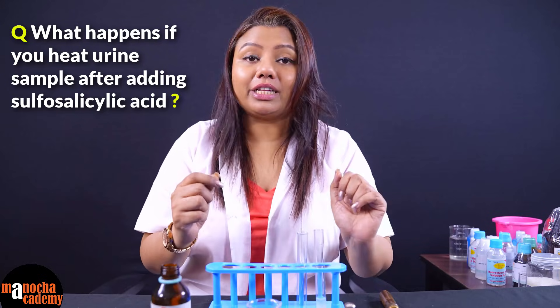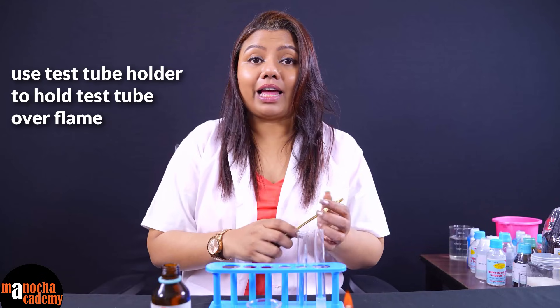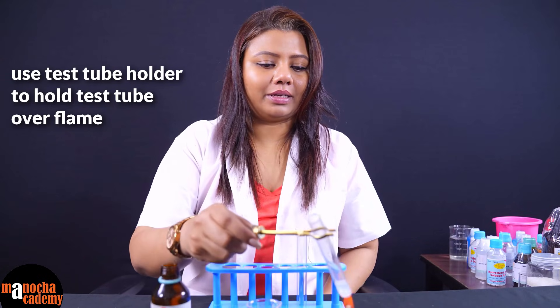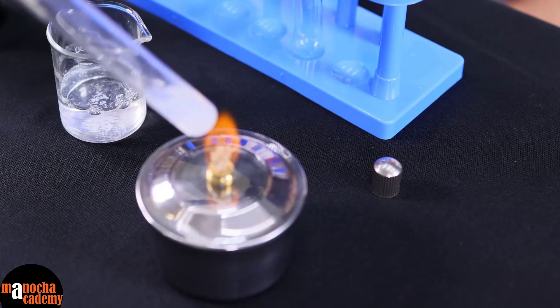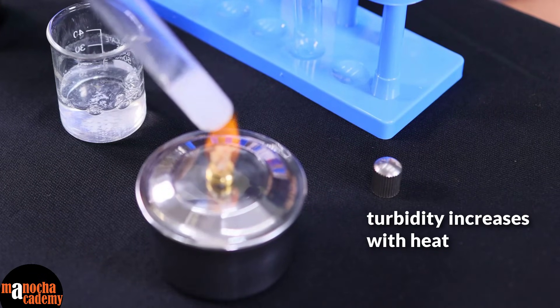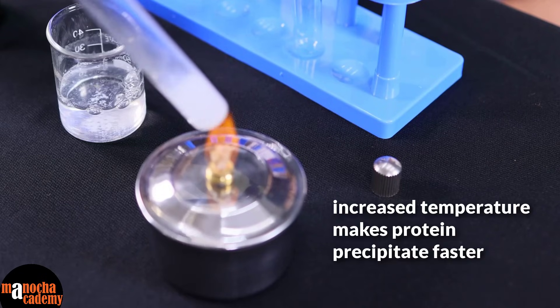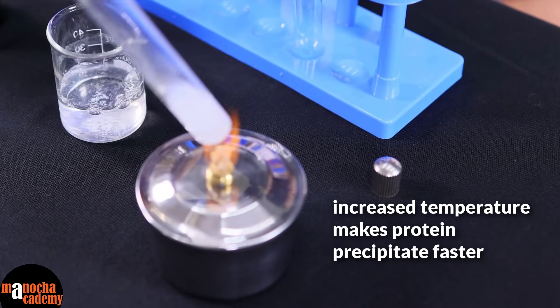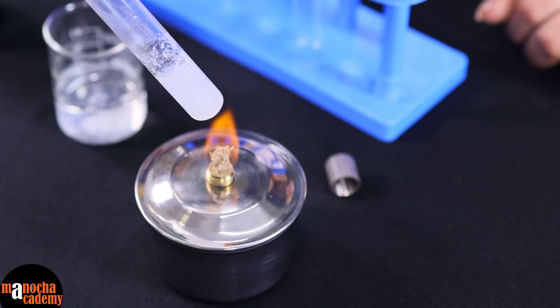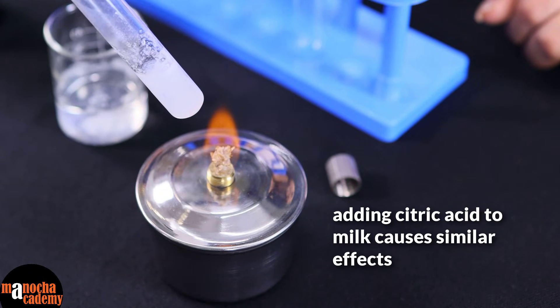Now what happens if you heat it? I will use my spirit lamp and with the help of a test tube holder, I will slowly heat the test tube. As we can see, as you heat it, the turbidity increases. An increase in temperature makes the protein precipitate faster in the presence of sulfosalicylic acid. A similar reaction occurs when you add citric acid to milk — the protein clots, coagulates and precipitates.